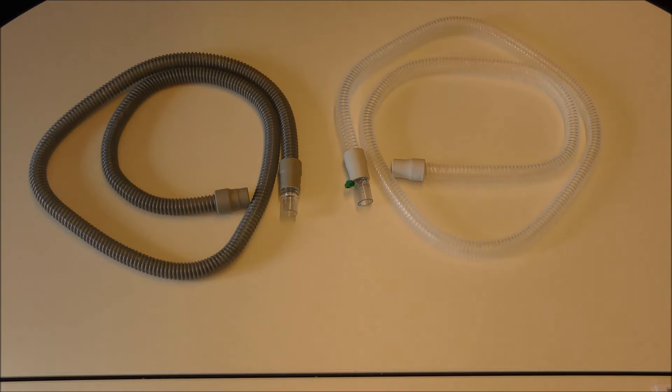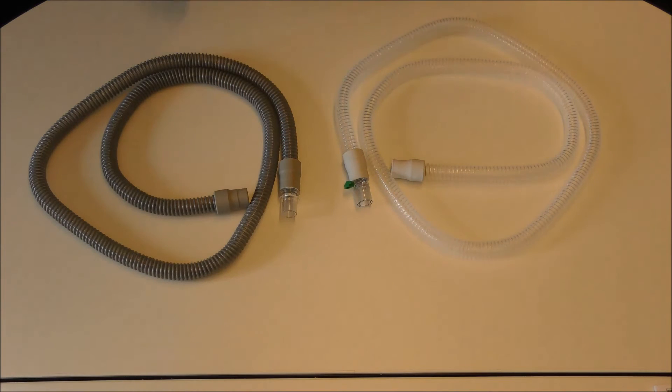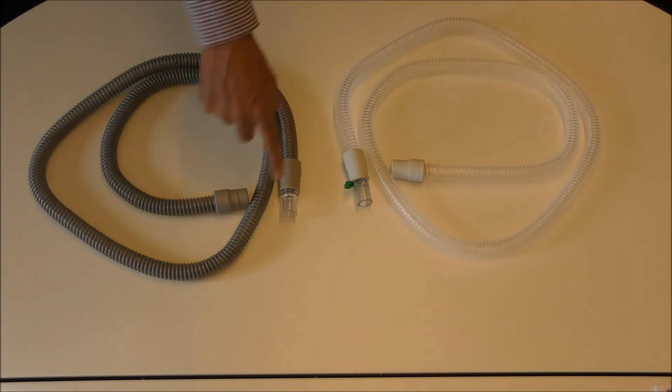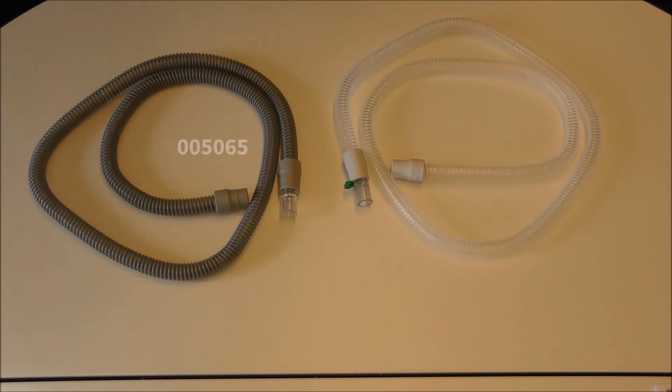Here we see the circuits with leakage ports. The reusable one with part number 005065 for use with the Vivo50 ventilators and the disposable one with part number 005060 for the Vivo50 and Vivo60 ventilators.